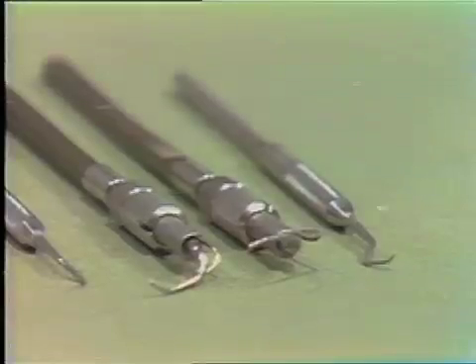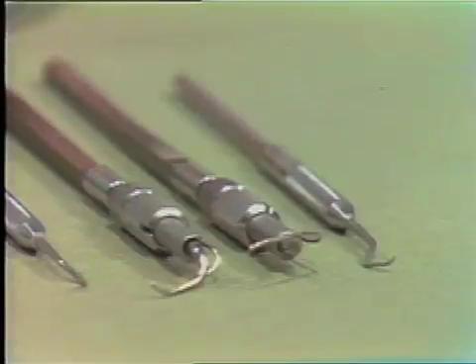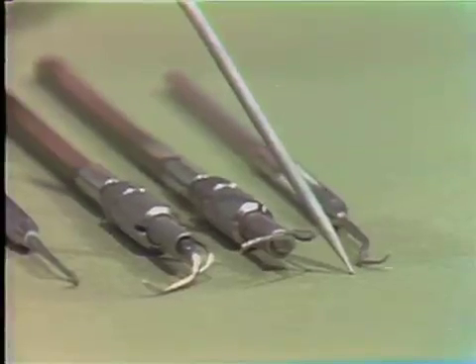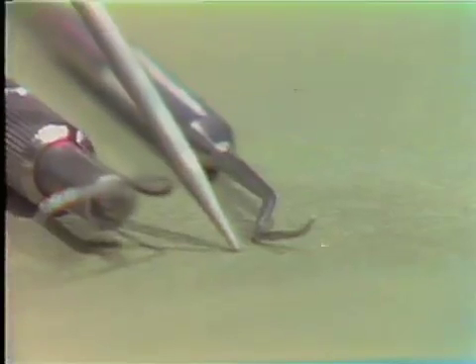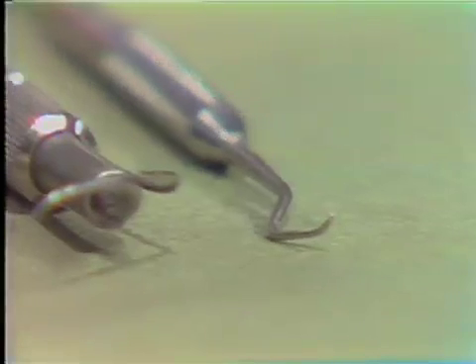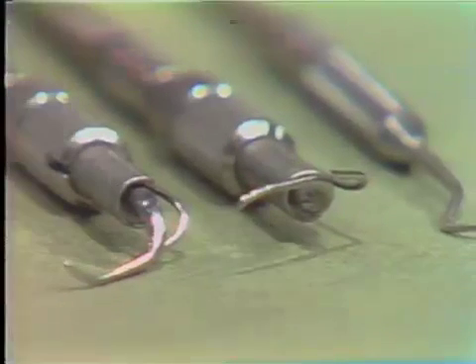Let me explain the variety of designs of the ultrasonic instruments. By way of contrast, this instrument here is a Columbia scaler. The Columbia scaler head is quite small, and in contrast to some of the Cavitron tips adjacent to it, many of these tips are a little bit larger.